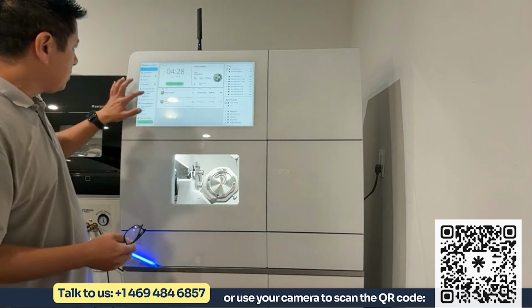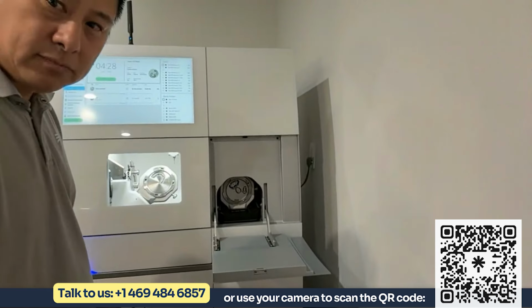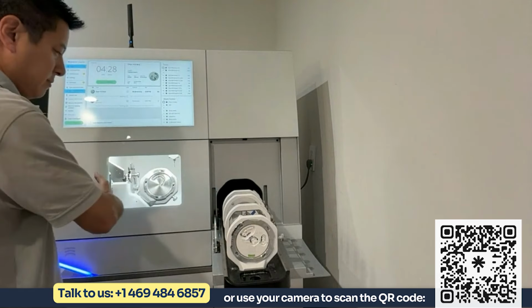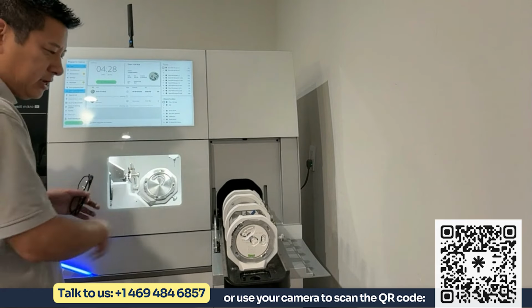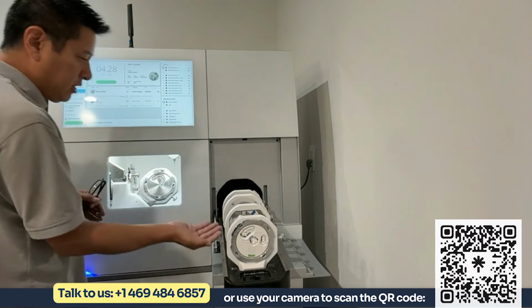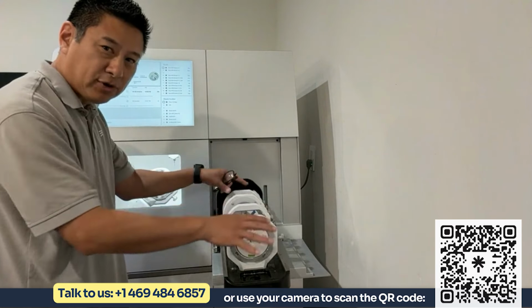So you can see here on the right, the big difference between these two mills is you have a blank changer. So it's an 8 blank changer that will load the mill, clean it, put it back, load another job, mill it, clean it, put it back. So if it's wet milling, it will blow all the liquid off before it puts it back. And if it's milling zirconia, it will blow the zirconia dust off before it puts it back. And that's what keeps this milling chamber clean.